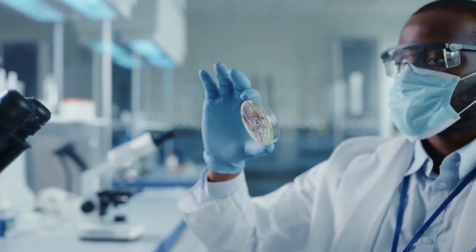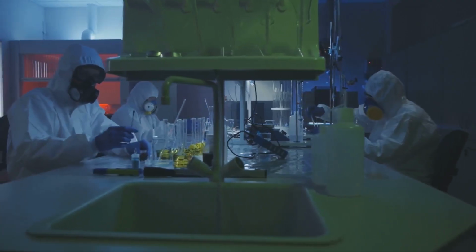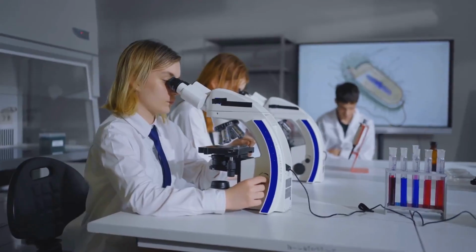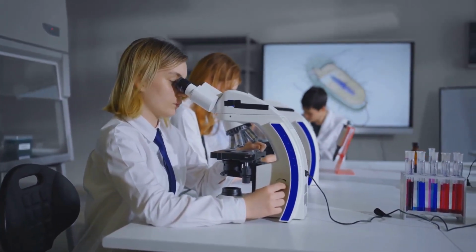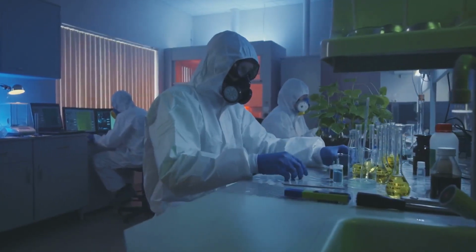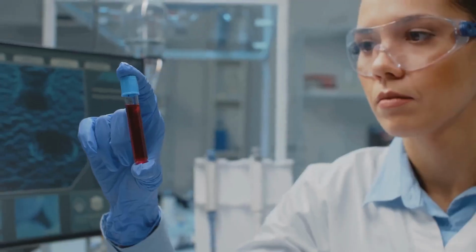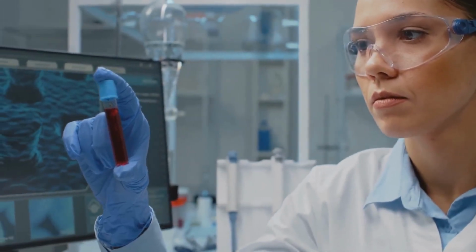Ever wonder how scientists tell one microbe from another? It's not just about how they look, it's about what they do. In this section of your microbiology lab, you'll go beyond the microscope to explore how microbes metabolize, react, and grow on specialized media. This video will help you connect biochemical tests and selective, differential media to real-world clinical work, because learning how to interpret these tests now will prepare you to make sense of clinical reports later.